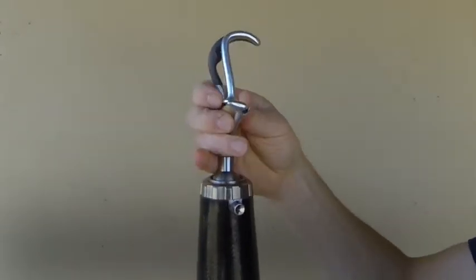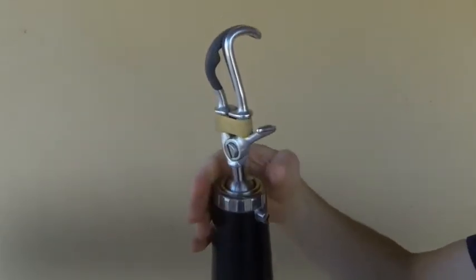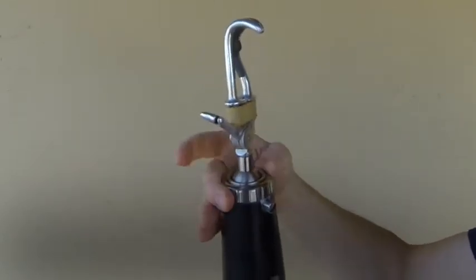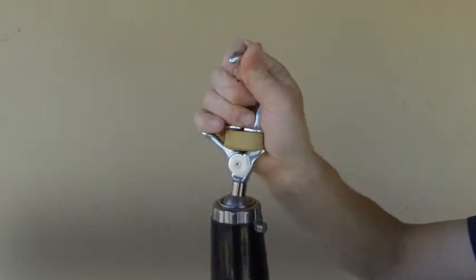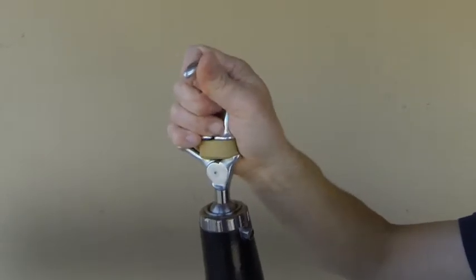Friction can be applied to the ball by rotating the ring, which makes it a little bit harder to bend the wrist but leaves it in an unlocked state.